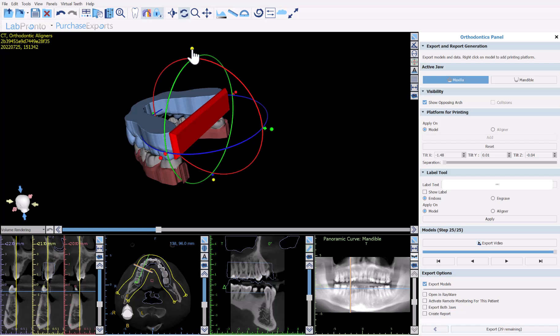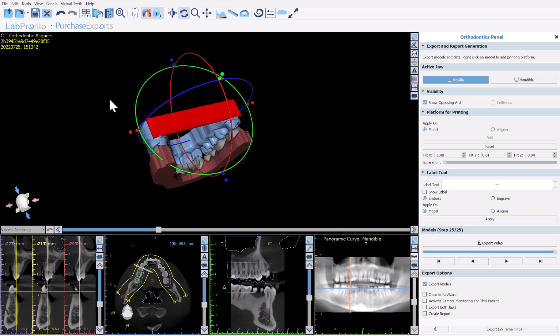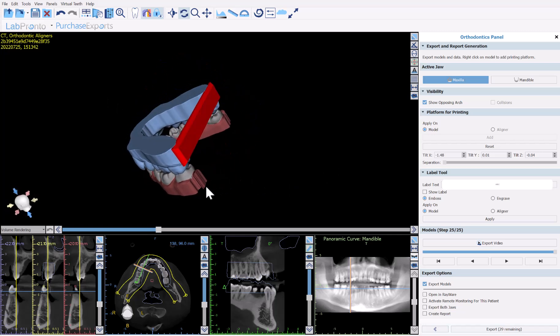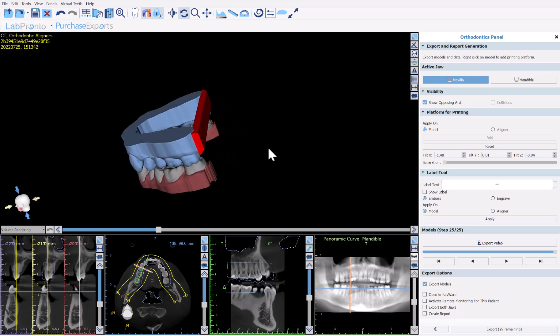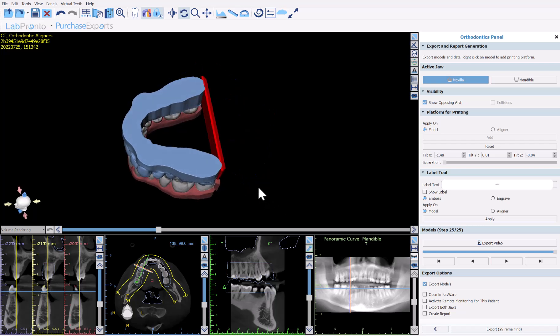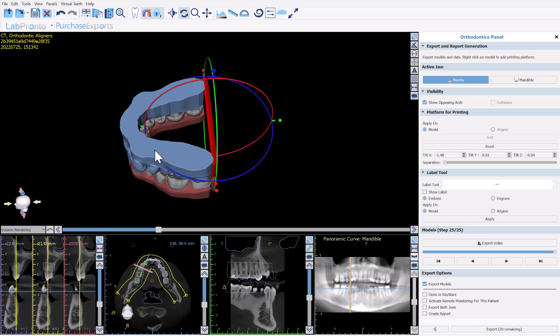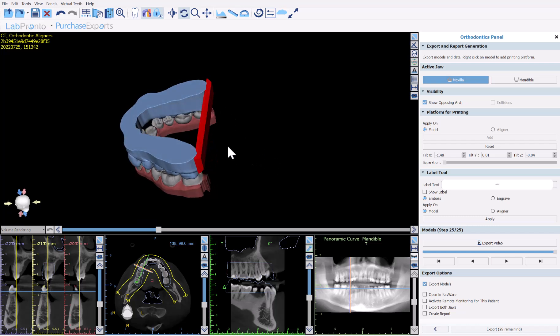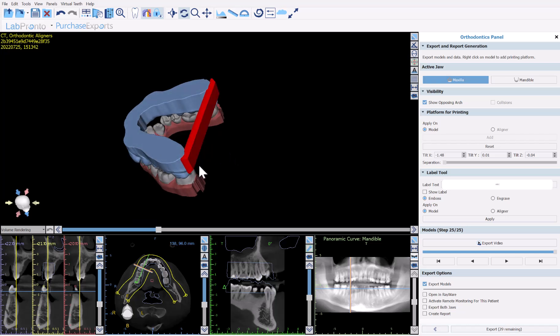Shrink the platform a bit so it slightly overlaps with the model itself. Although we're doing this on one model for the upper and one for the lower, the platform will be added to all models upon export. We also have the ability to generate hollow models to save on printing time and material, and optionally add a crisscross pattern closing the top while the inside remains hollow.